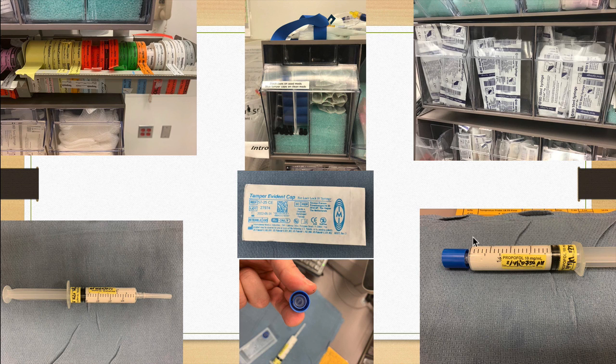Once you need to use this on a patient, you can pull directly on this blue cap. It will pop off, and the inner portion of this blue cap will remain. That will signal to you not to use this on the next patient, because it's very likely, even if theoretically, it has been used on a previous patient. So if you see a syringe that doesn't have a blue cap, only the inner portion of one, it has to be thrown away before the next case starts.